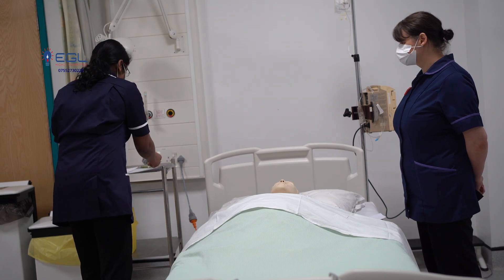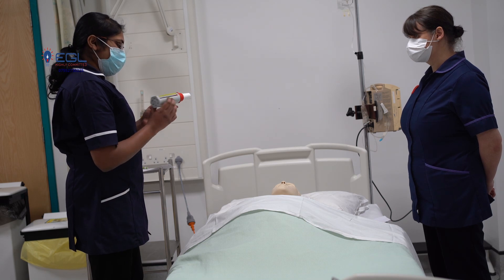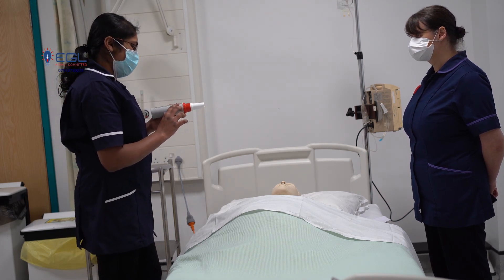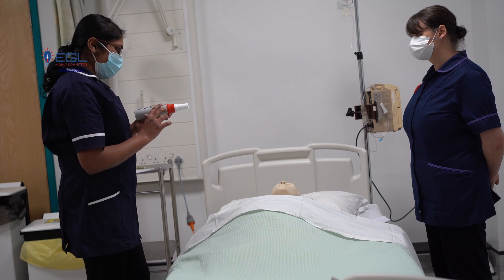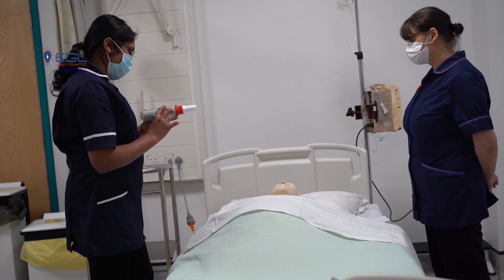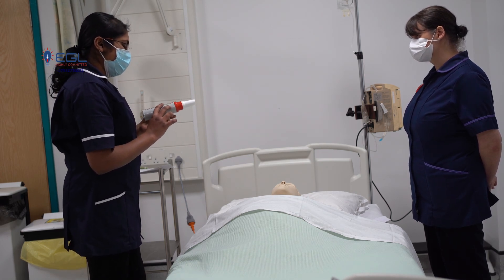This is the peak flow meter. This is the mouthpiece and there is the gauge. We should hold the peak flow meter horizontally and always make sure that the gauge is at zero before each attempt. We need to do this measurement three times a day — in the morning, in the afternoon, and before bedtime. During each time, we need to take three attempts and we take the highest reading from these three attempts.